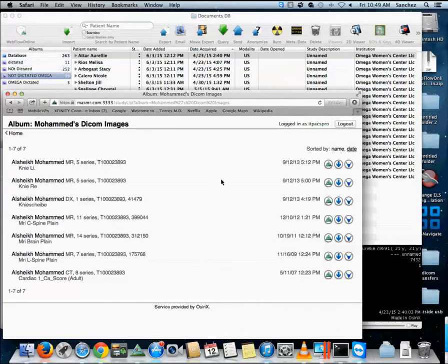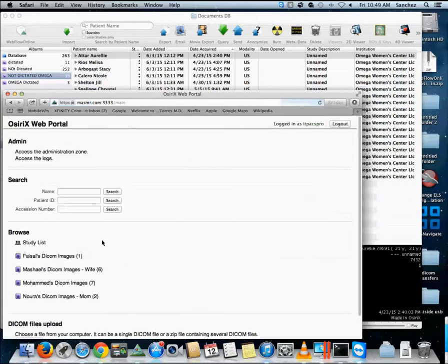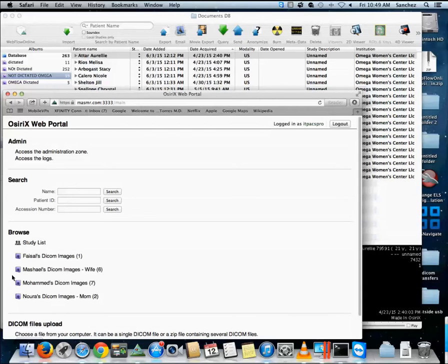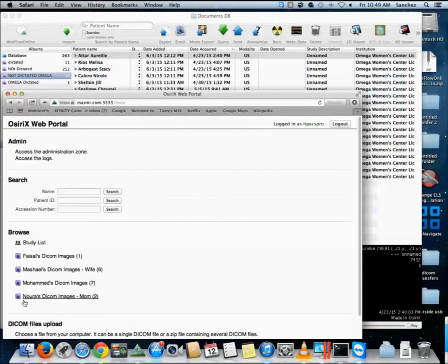So what we want to do is when he logs in here on the home screen, maybe have some type of a button to turn on auto download and it will begin to download all of the studies. He can check off the smart albums that he wants to download. So if we have these smart albums not dictated, obviously he doesn't want to download the ones that he dictated already. He can see those smart albums here, he can check them off, and then he can press a button that says auto download.